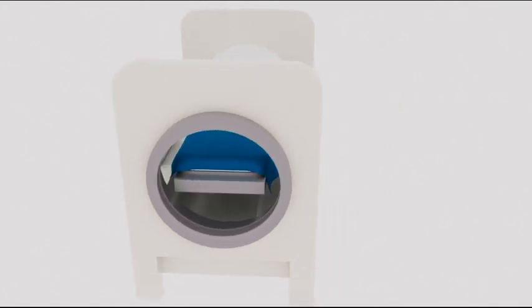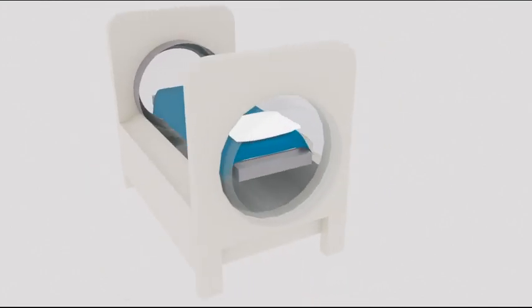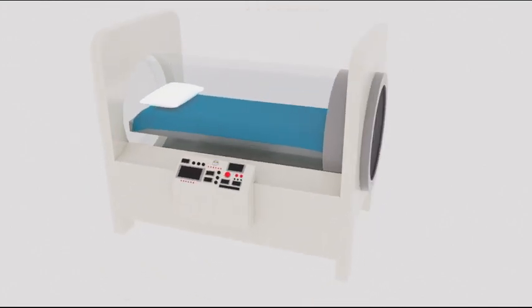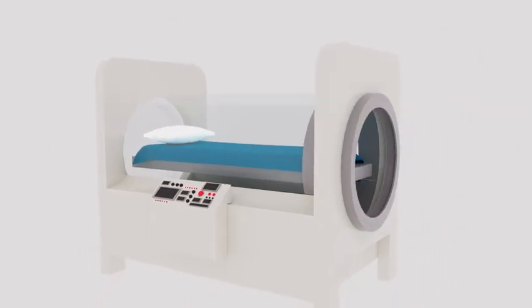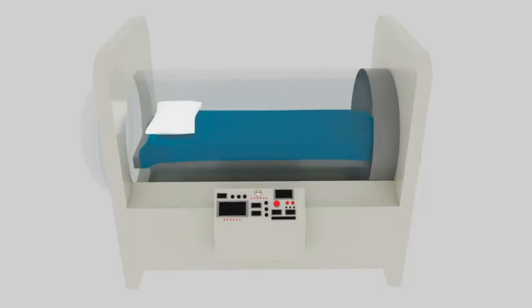A hyperbaric chamber is used for oxygen therapy. This aids in the treatment of decompression sickness in divers, traumatic brain injuries, and the healing of wounds.